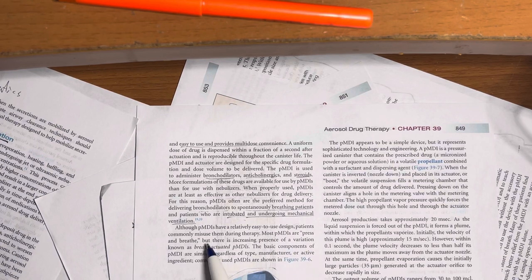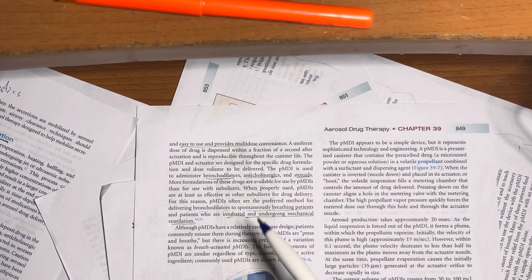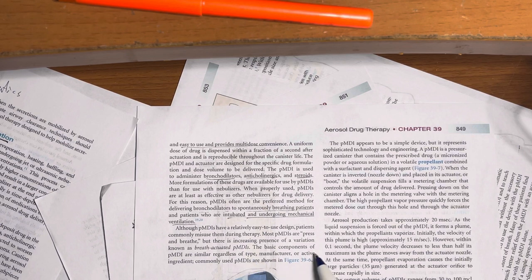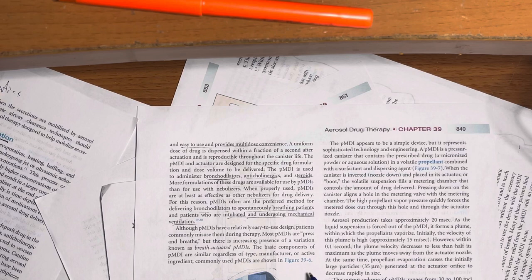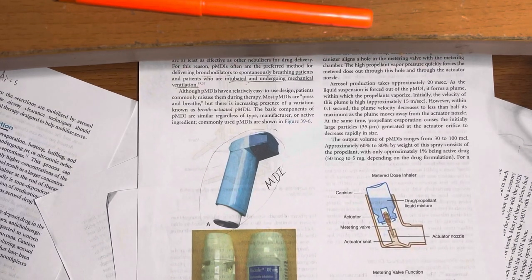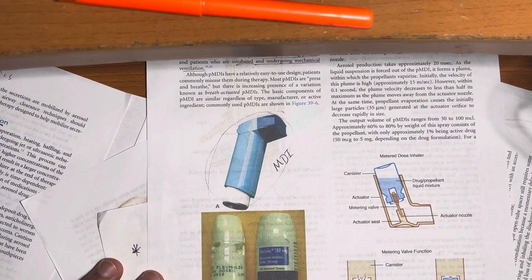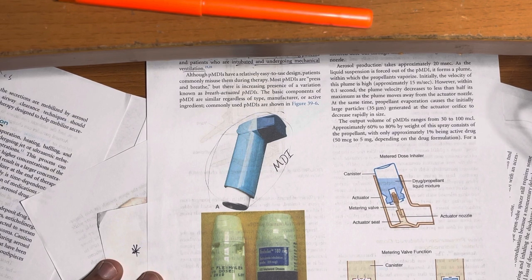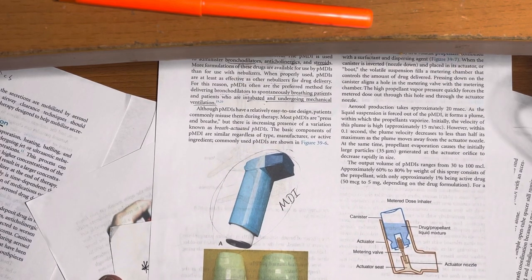Although MDIs have a relatively easy-to-use design, patients commonly misuse them during therapy. Most MDIs are press-and-breathe — you press and inhale — but there is an increased presence of breath-actuated PMDIs. The basic components of MDIs are similar regardless of type, manufacturer, or active ingredient. Examples of commonly used MDIs include Albuterol inhalers and various others — they all do the same thing; at the end of the day, they're all metered-dose inhalers.